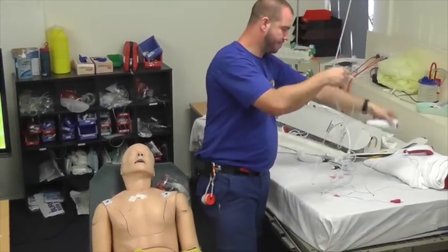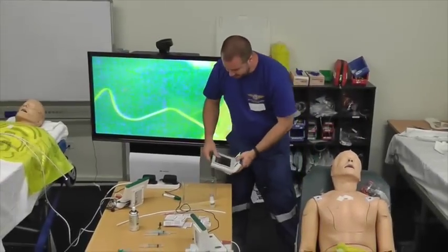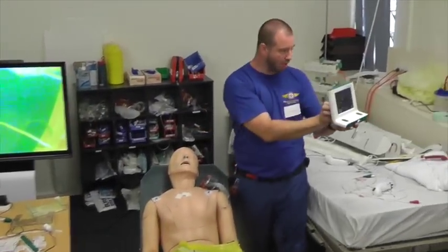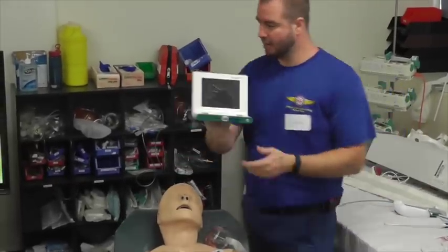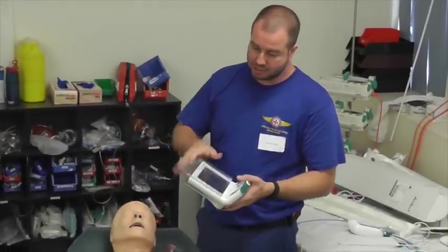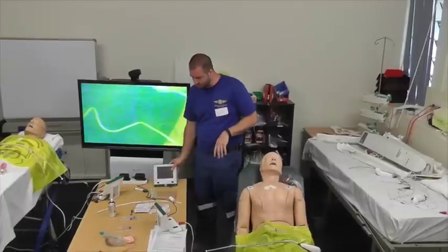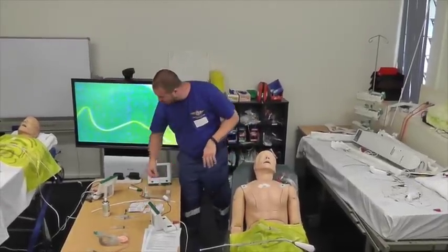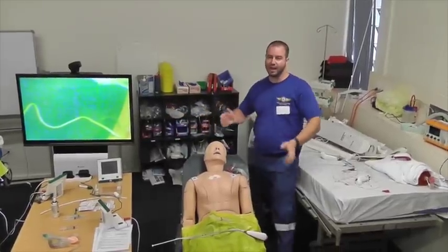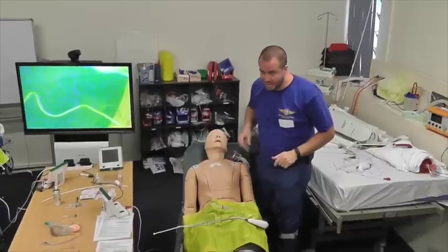Now, the company states that the monitors are retrieval proof, but you can see that they're not. So you have to be careful with your kit. What we designed was a plastic Perspex cover to go over the front of them to protect the screen. They're not disposable. Please don't throw them out, and the monitor's certainly not disposable. They have a battery life, but I recommend that you plug them in, because odds on the battery will go flat at the time when you've got the view of the cords and you're about to put your tube in. Is everyone happy so far?